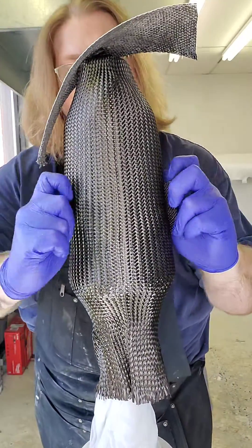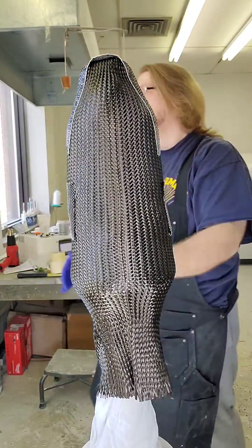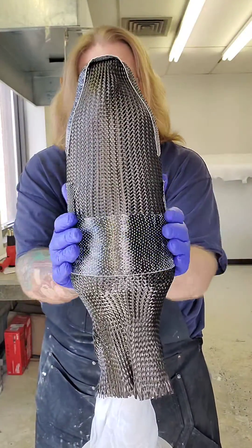After that I'll use some reinforcements — one across the bottom where the lock goes, one across the back of the knee, and one across the front of the knee. This way, if you kneel or hit your knee on anything, it won't split the socket.